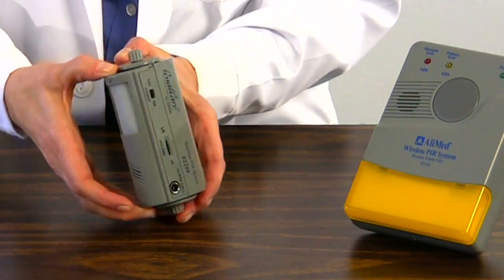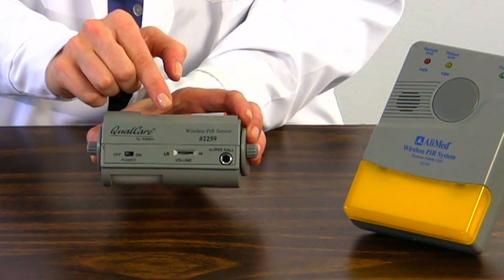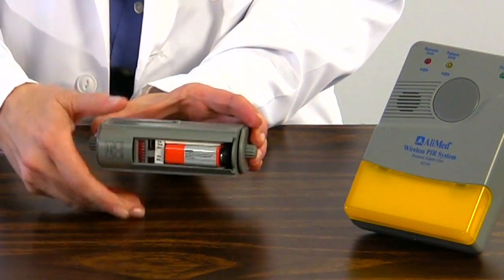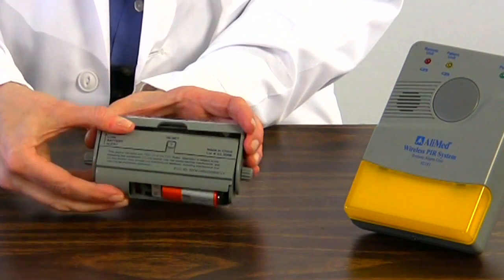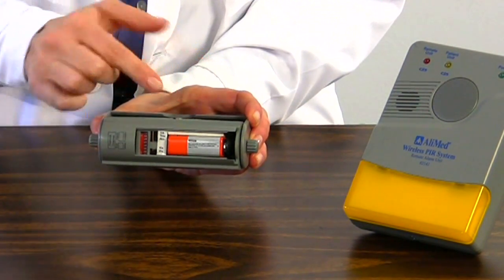On one side of the alarm is the alarm settings which include the on-off switch, the high-low volume slider, and the nurse call jack. On the reverse side is the reset button. The unit swivels in the holster to expose the battery compartment. Here you'll also find the transmission mode controls.